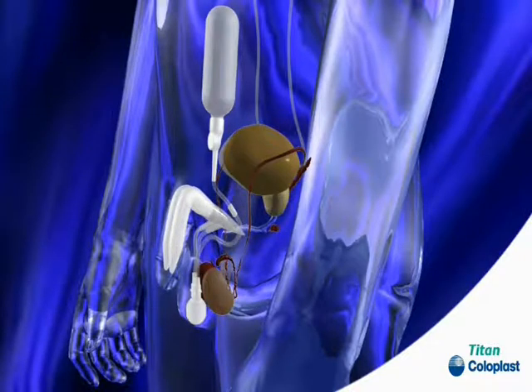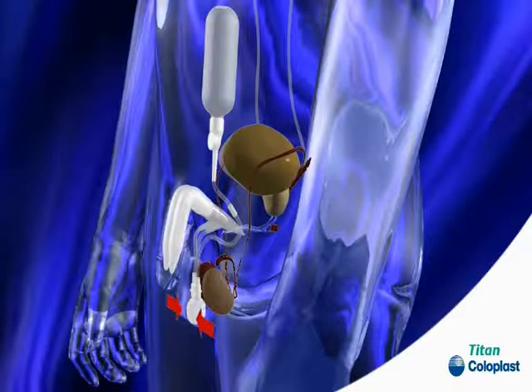To move the fluid from the reservoir into the cylinders the pump is squeezed firmly a few times until an erection is achieved.